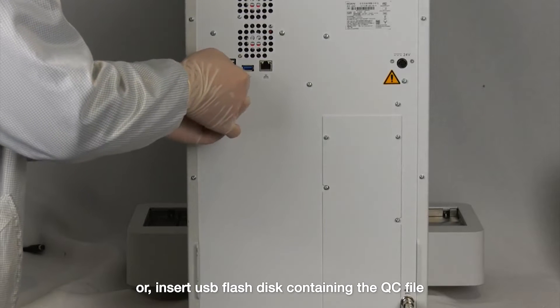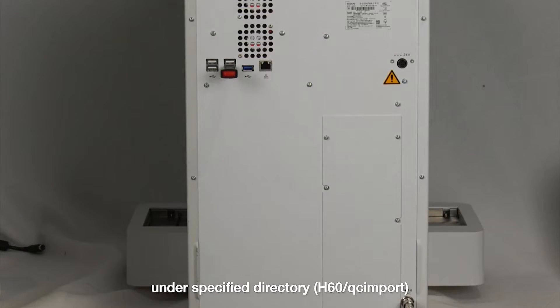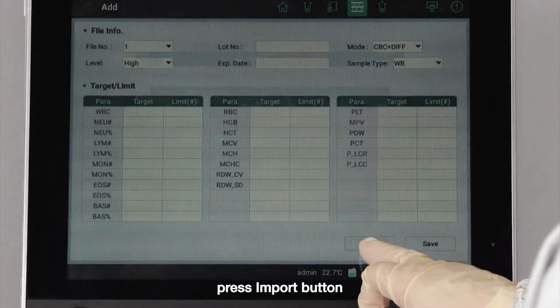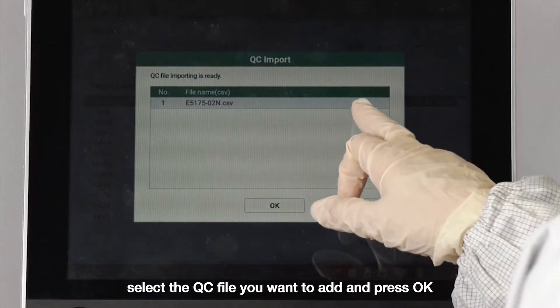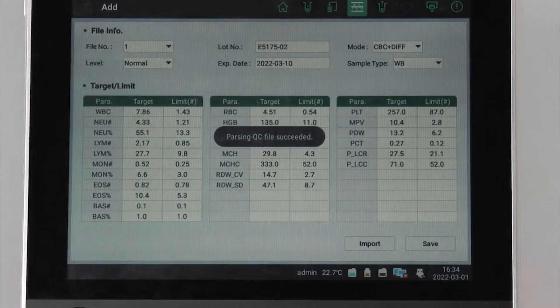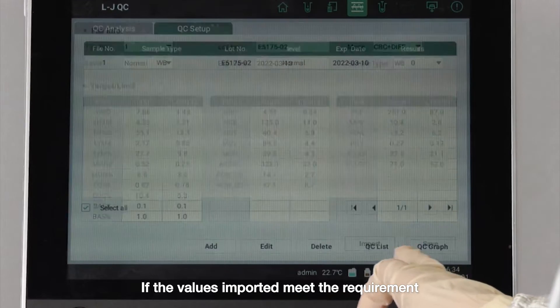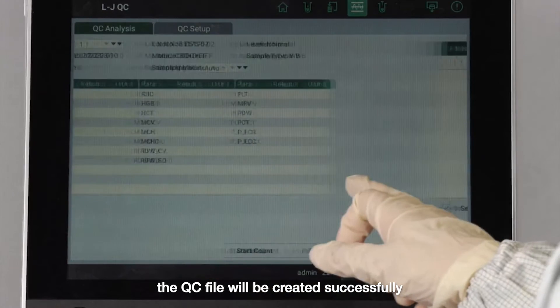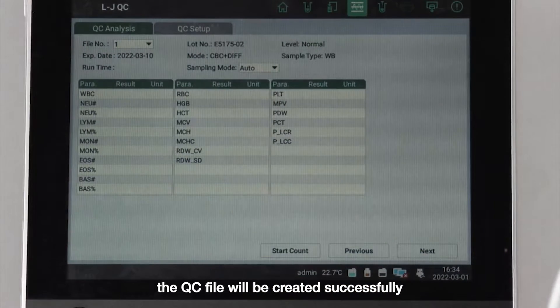Or, insert a USB flash disk containing the Quality Control file under the specified directory. Press the Import button, select the Quality Control file you want to add, and press OK. Press Save. If the values imported meet the requirement, the Quality Control file will be created successfully.